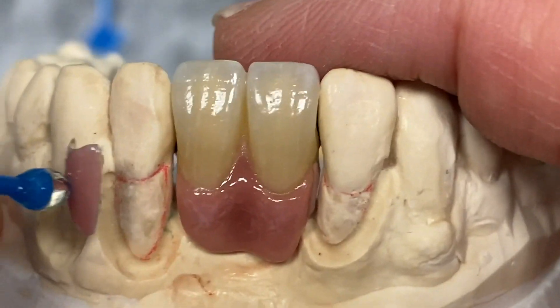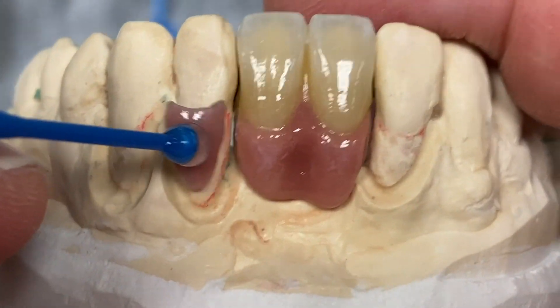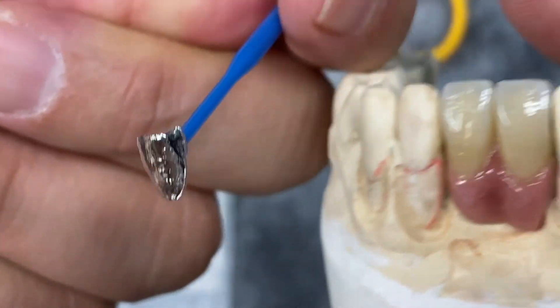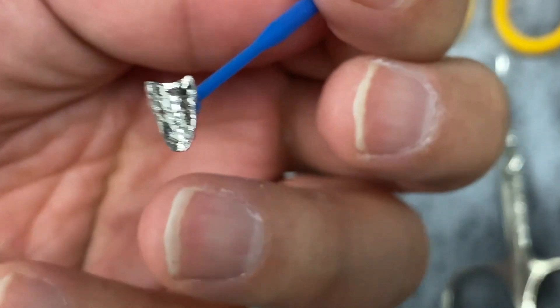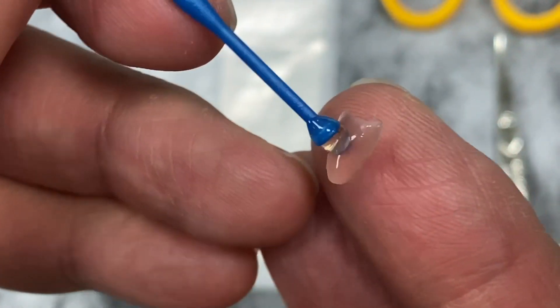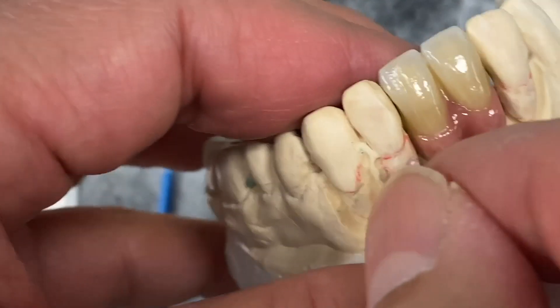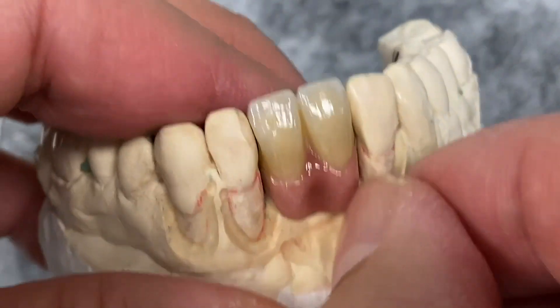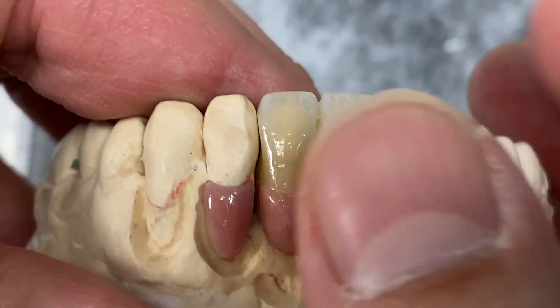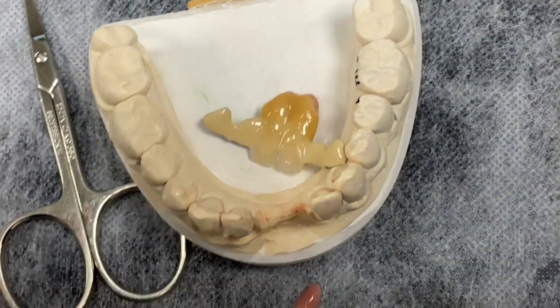All right, now pink aesthetics — here is the pink. Isn't it beautiful? So we had the sticky wax. People were asking — this is the platinum foil. We took it out with a tweezer after it sat, and we got the pure pink porcelain aesthetics. Number one is here — put this in. It's beautiful. And then we have another one — I call it number 23.